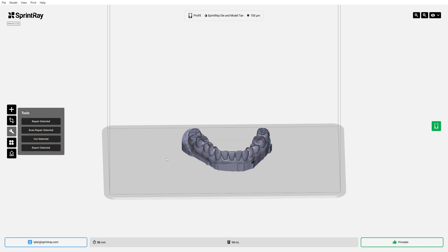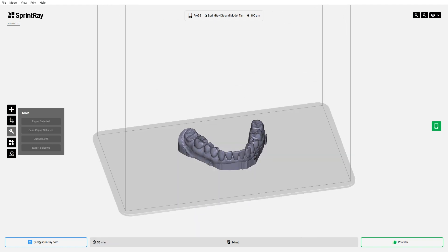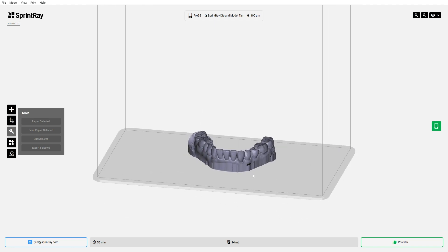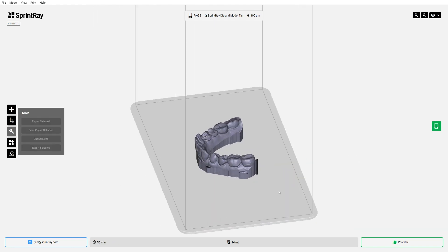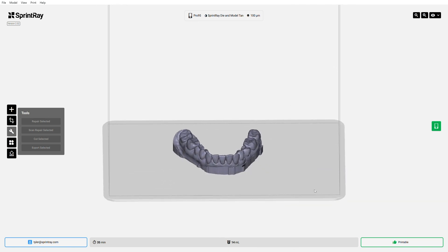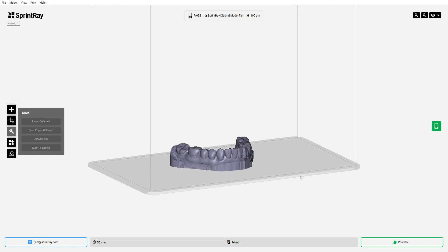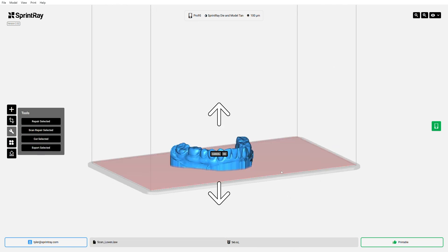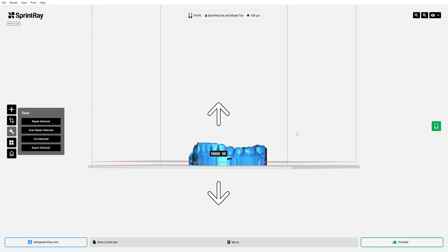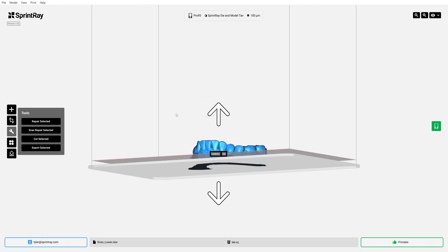But let's say I don't want this thing to take 35 minutes. I don't want it to be this large file. And I think this is maybe a little bit excessive in terms of how much area it's added. So I want to trim some of this off. No problem. So I select the model, press cut selected. This is going to produce a plane. Now anything below this plane, when I select OK, is going to get deleted. Anything above is going to stay.